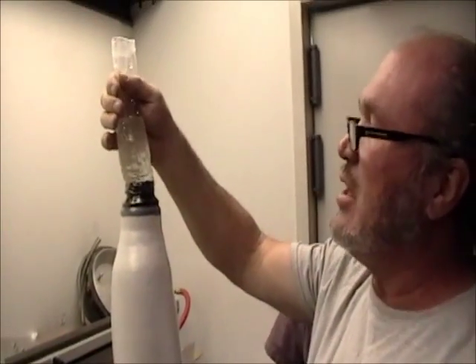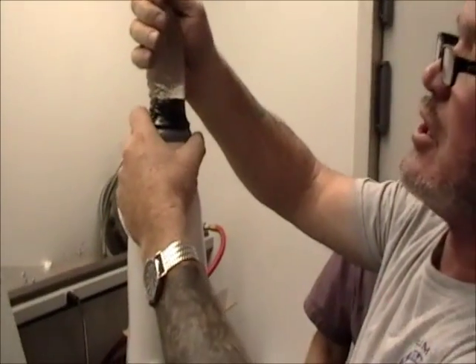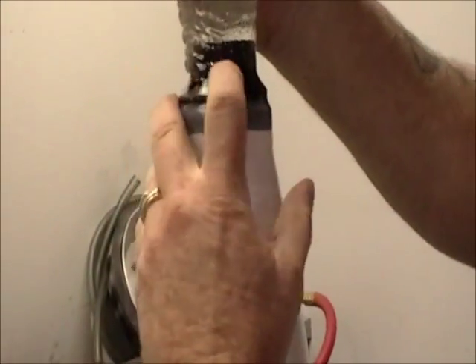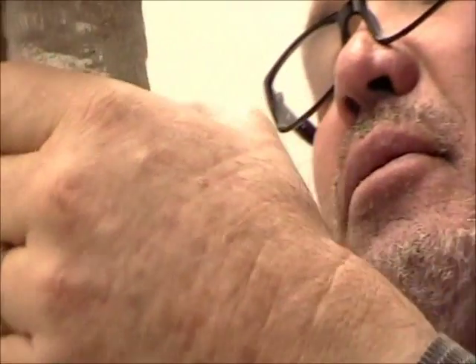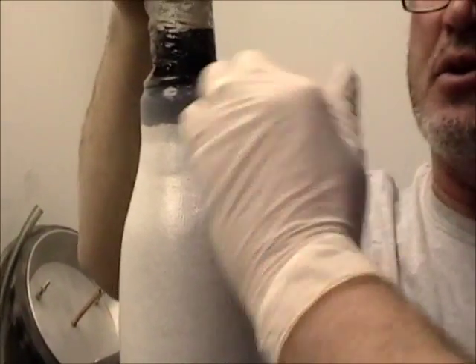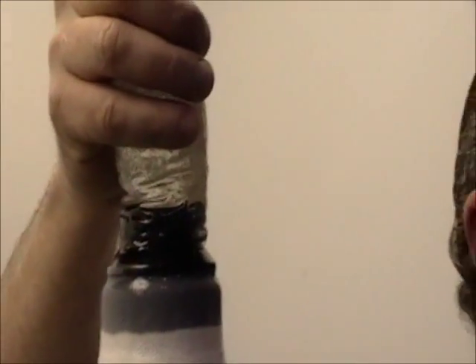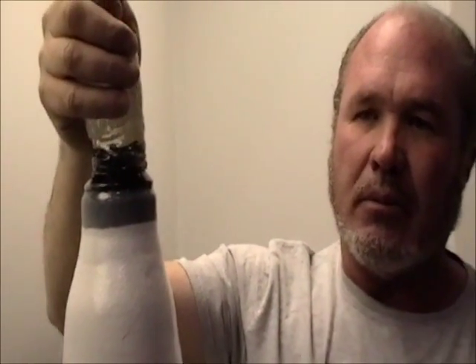I do not want to jump in here and just start squeezing down. I want to let this just soak and do its own thing. What that's doing is pulling the air out of that distal end and replacing it with the resin. Right here is where most technical staff will get in trouble, because they just want to grab this resin and squeeze. It's natural — it's what we've always done — and that's because we've always laminated with products that have the viscosity of water.